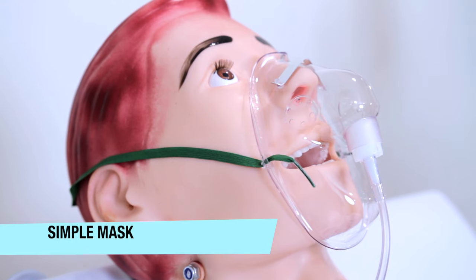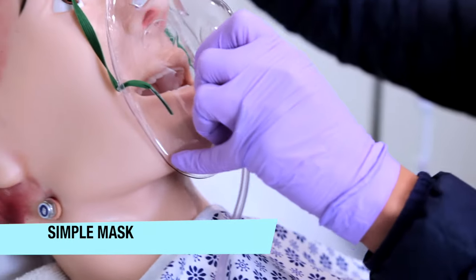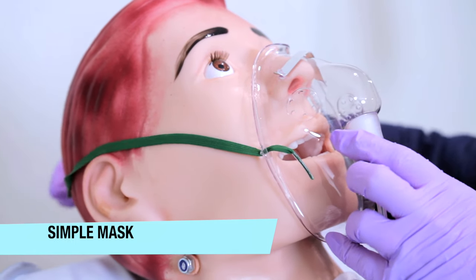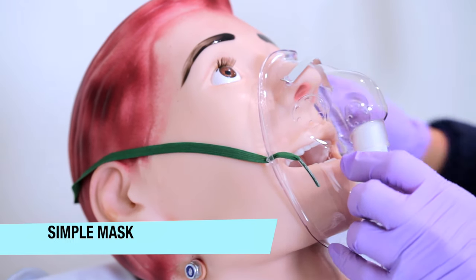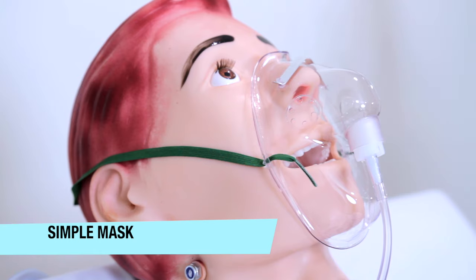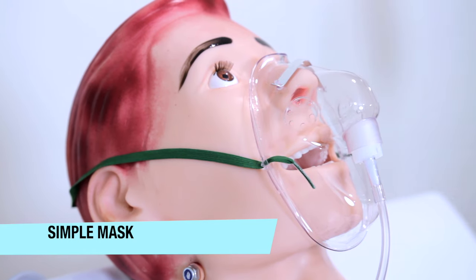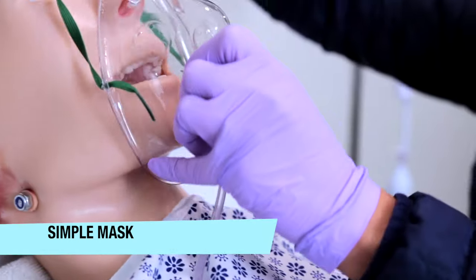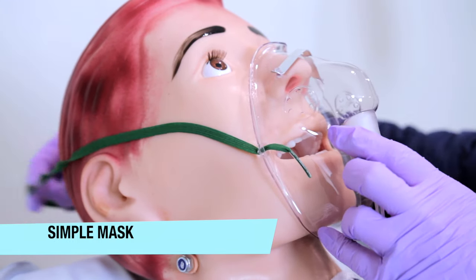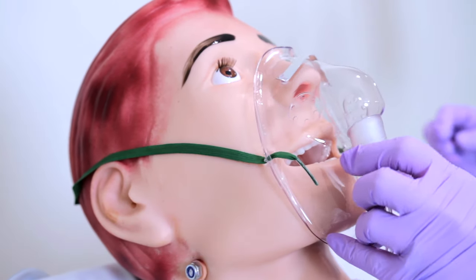Without an adequate seal, room air will enter and dilute the oxygen, preventing delivery of the prescribed oxygen concentration. A disadvantage of this mask is it can be confining, irritating the patient's skin and interfering with talking and eating because it requires an airtight seal. It is not ideal for long-term use.